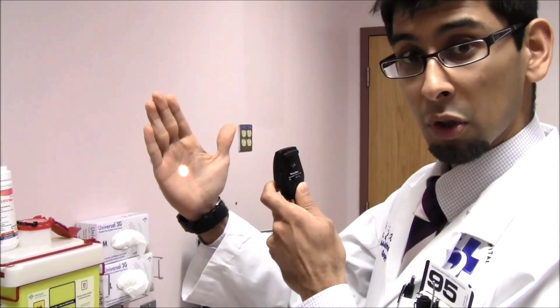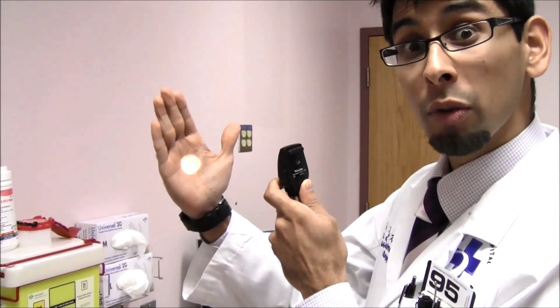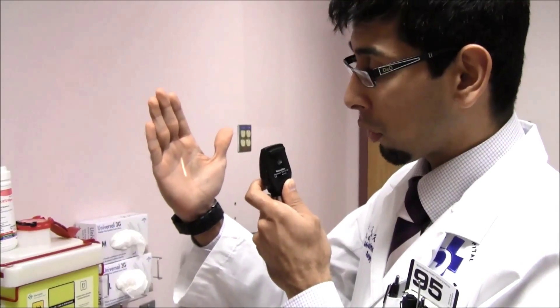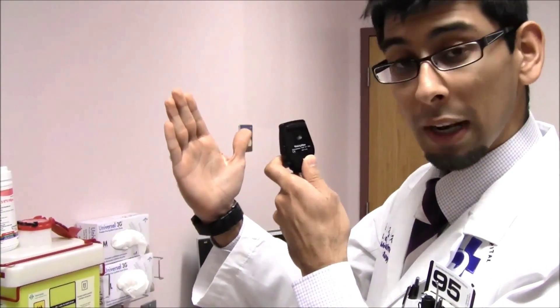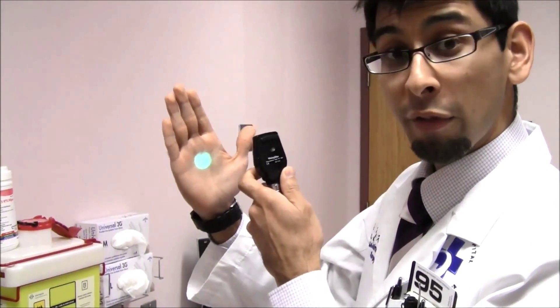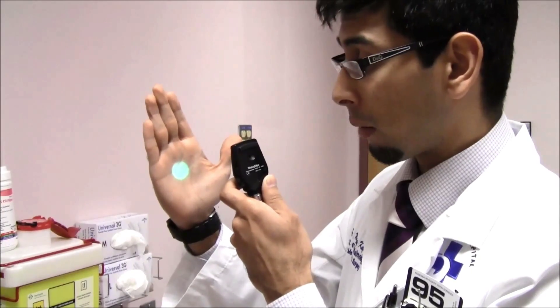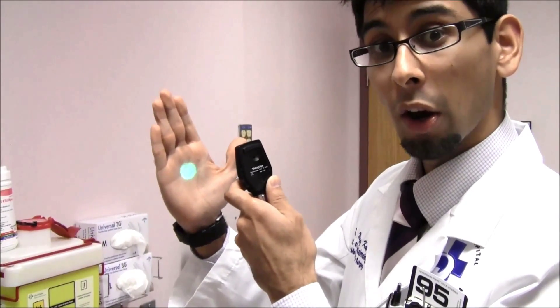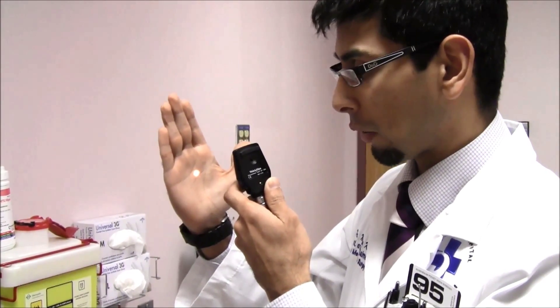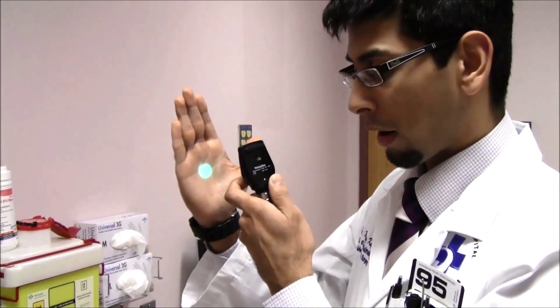Small circle, medium circle, large circle, circle with the crosshairs — used to measure size differences within the retina. Line — this is a slit lamp mode; if you use this, you can use it as an anterior segment machine if you have two of these. Red-free light — this is important. It's a green light, red-free. It's used to see blood on the retina; blood will look black on a white background, instead of with standard illumination where blood will look red on an orange background. You'll need to master the white light before you can master the green light, which is red-free.